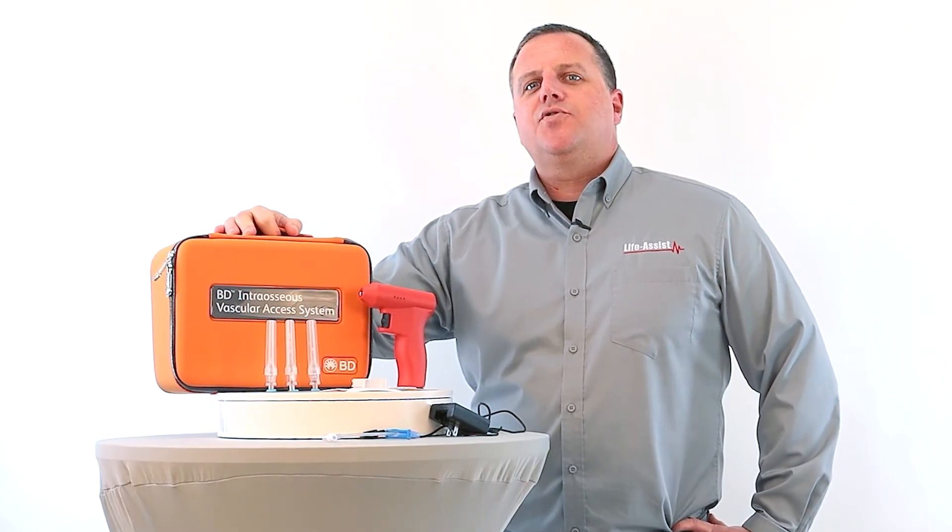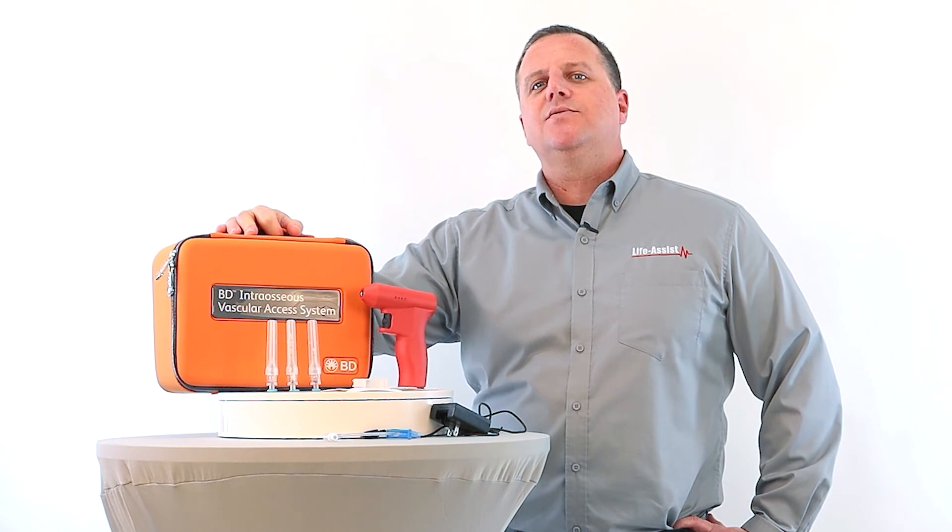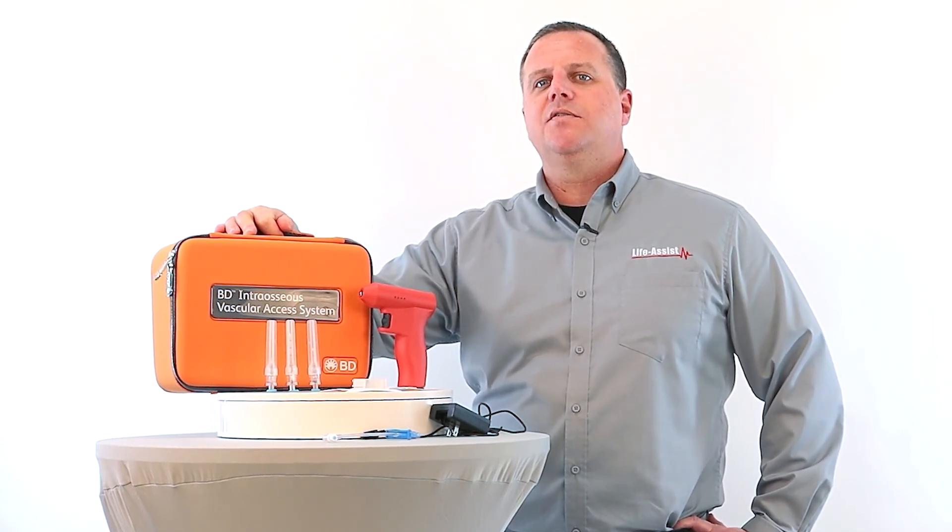Well there you have it, the BD intraosseous vascular access system will not only decrease the time it takes to establish an I.O. but also provide reliability and safety to the user.